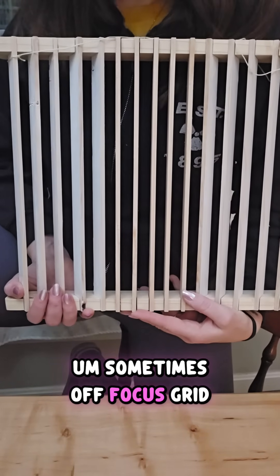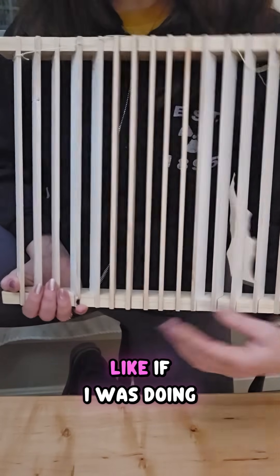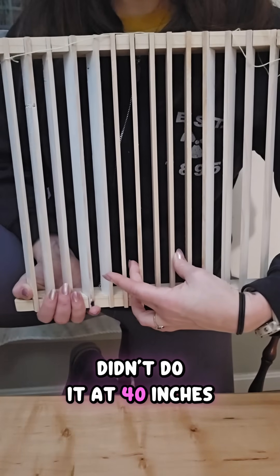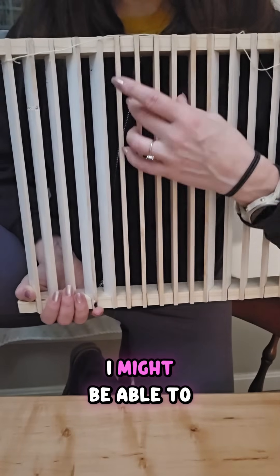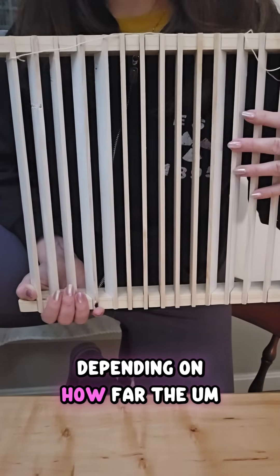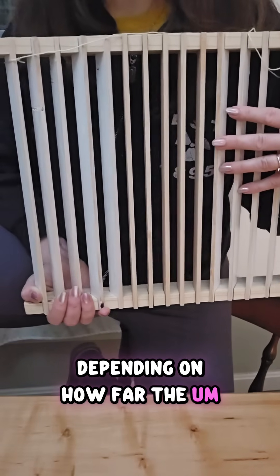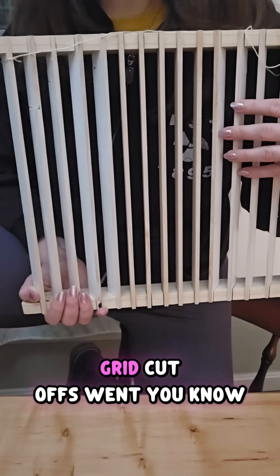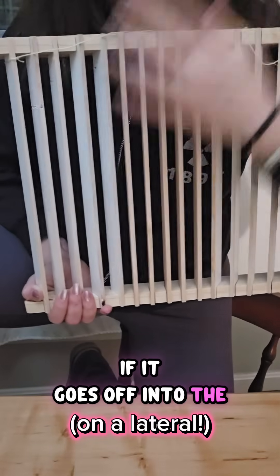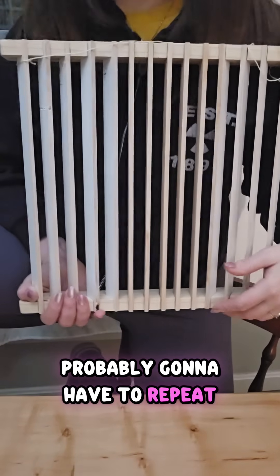Sometimes off-focus grid errors can still be used. Like if I was doing a lumbar spine and I didn't do it at 40 inches, I might be able to get away with sending it depending on how far the grid cutoff went. If it goes off into the spinous processes, I'm probably going to have to repeat.